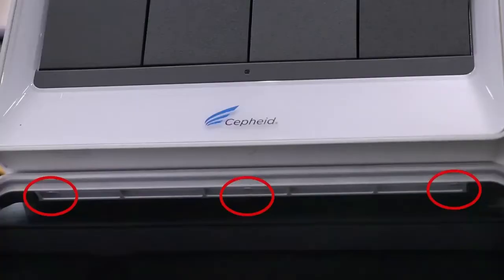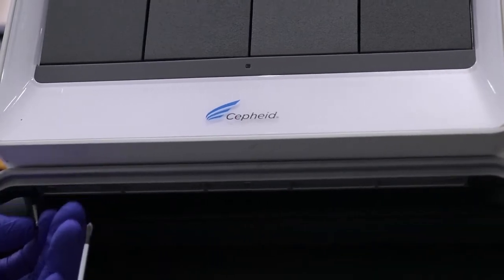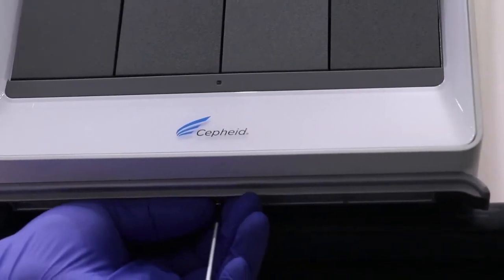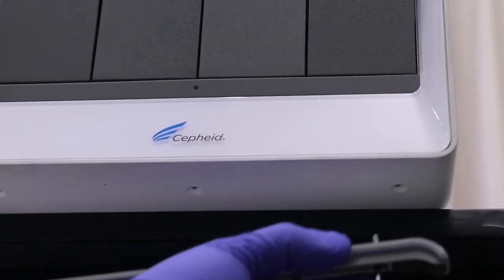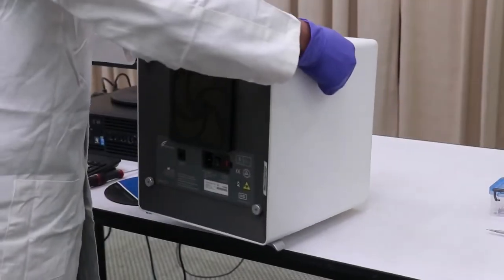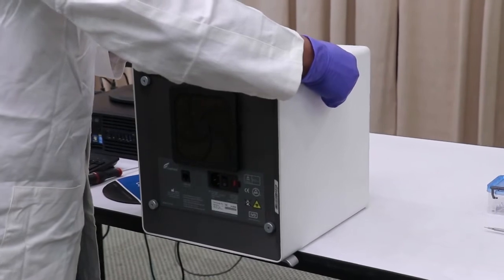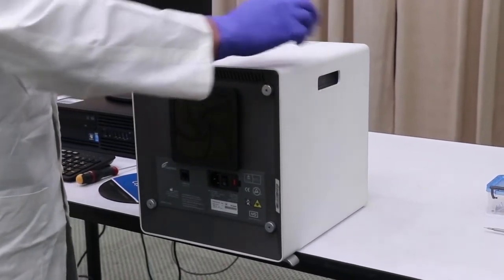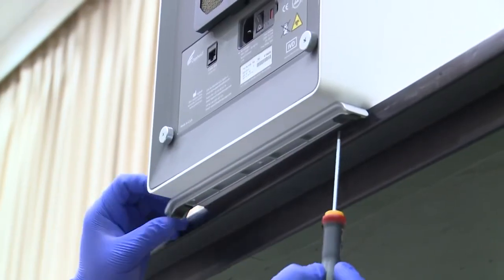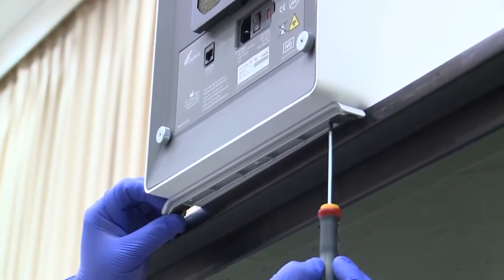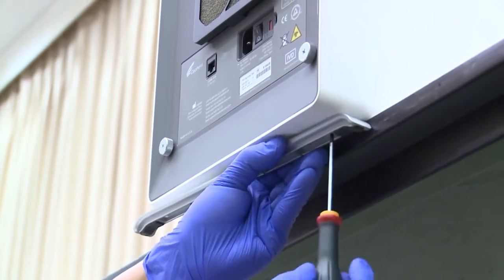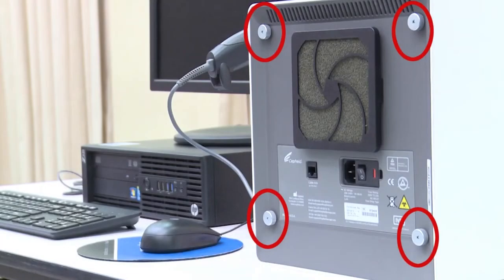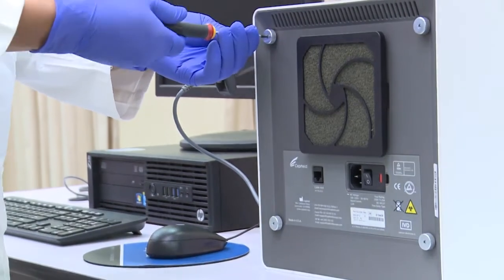Then remove the three screws on the front foot. After that, unscrew the four screws on the back cover and remove the cover.